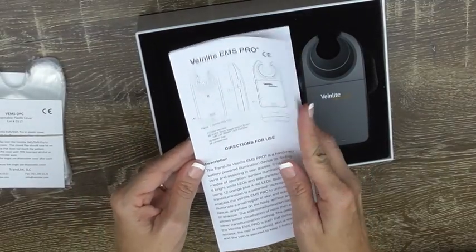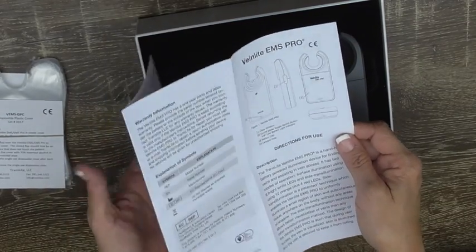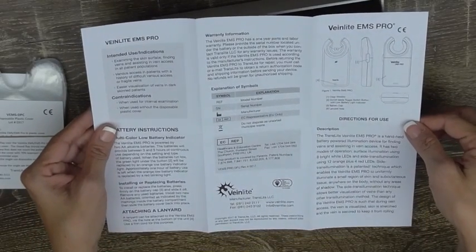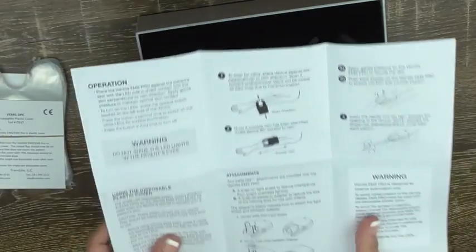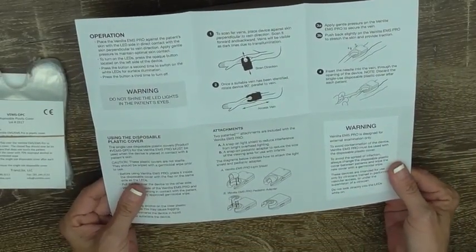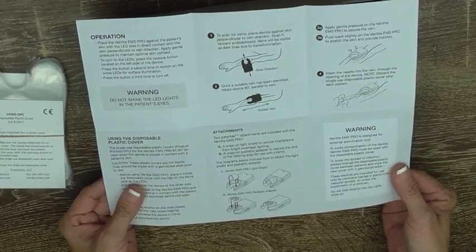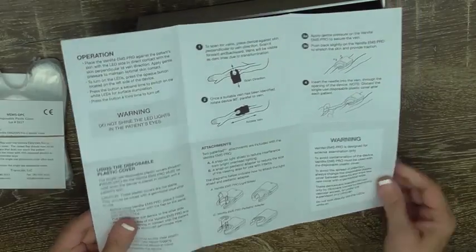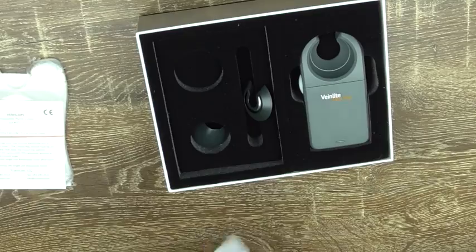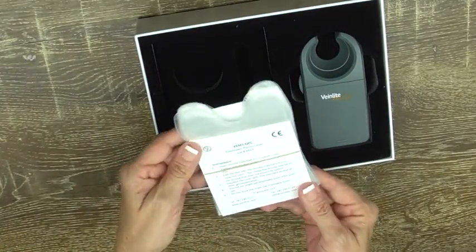There's a little pamphlet and instructions. It's not very big but it's really clear — it gives you all the information and instructions that you need. I'm really surprised at how clear and basic it is, but it's very informative.